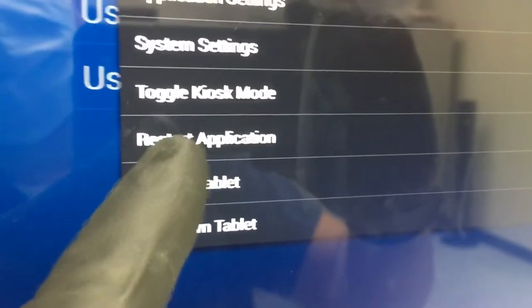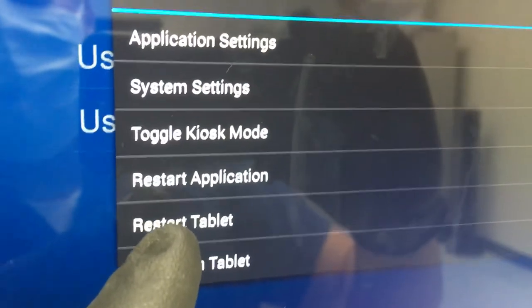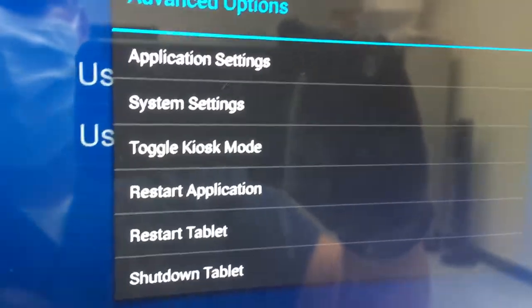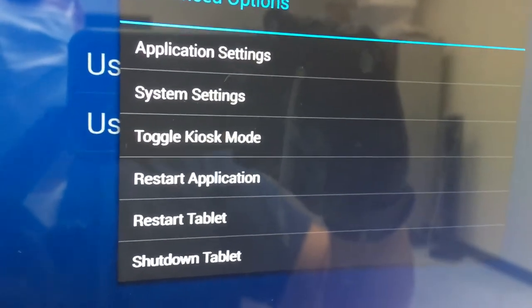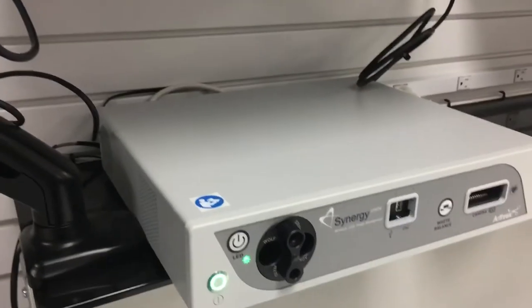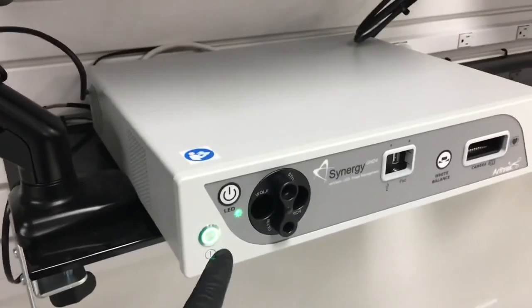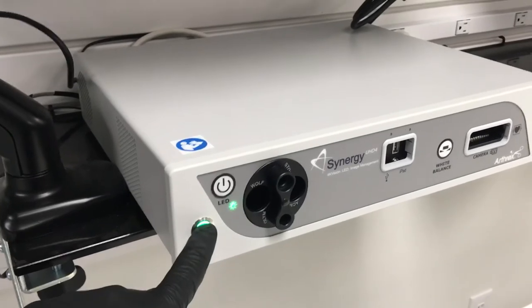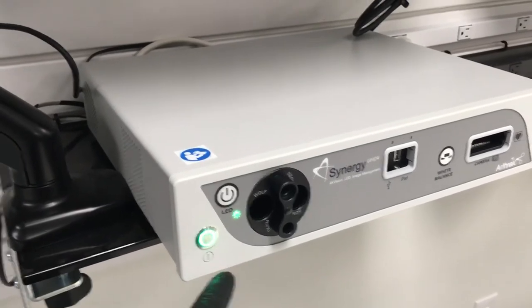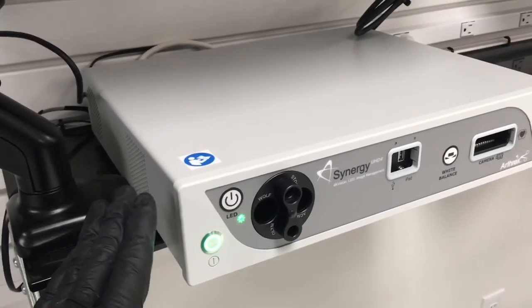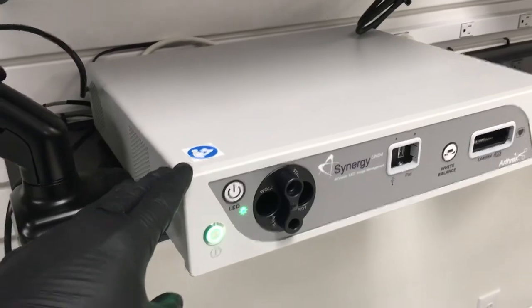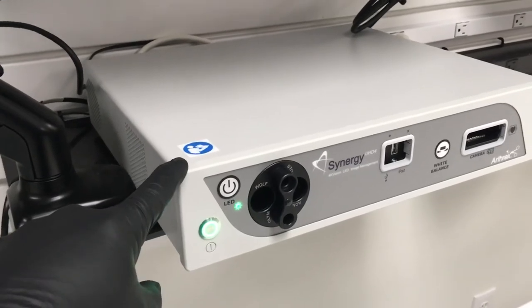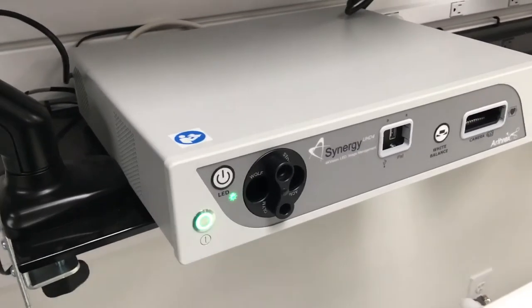which is called powering off the CCU by pressing and holding this button. You wait a few seconds, let go, and it'll go to dark and power off. Wait about five to ten seconds, and then just press and release it. It'll power back up.